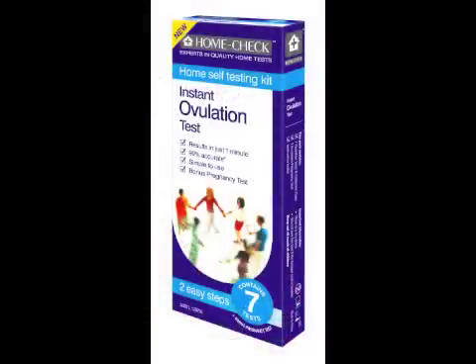The kit contains 7 ovulation tests and 1 pregnancy test, plus 7 urine collection cups, and retails for around $23, which is the best value ovulation kit on the market.